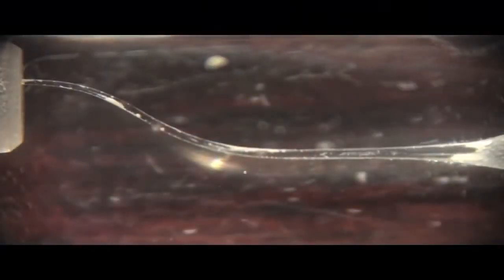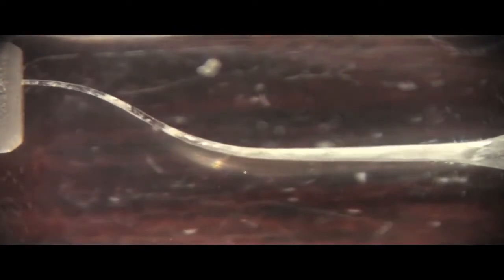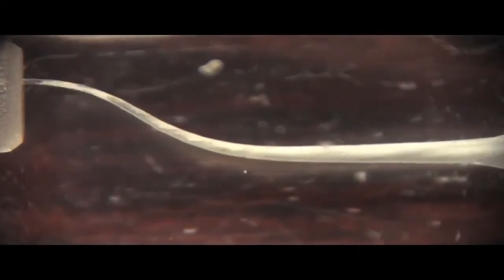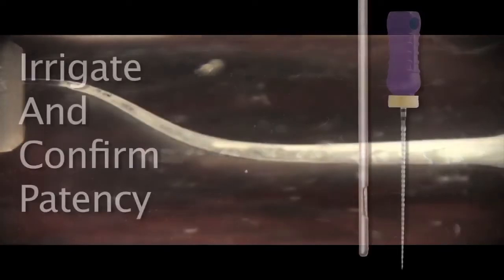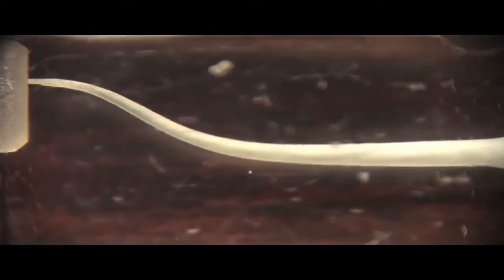Let's take a look at the Wave 1 in a plastic block. We start with K-files to confirm the necessary patency and glide path, common to all root canal shaping techniques. The Wave 1 is introduced with appropriate irrigants and taken with a few pecking motions of about 2 to 3 millimeters into the canal space. The file is withdrawn, cleaned, and inspected, and the canal irrigated. With patency confirmed, the Wave 1 file is reinserted and canal shaping continues. After each pass, small hand files are employed during irrigation to reconfirm patency. In this plastic block, three passes were all that was required to achieve a beautiful shape.